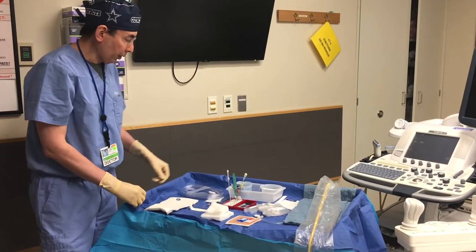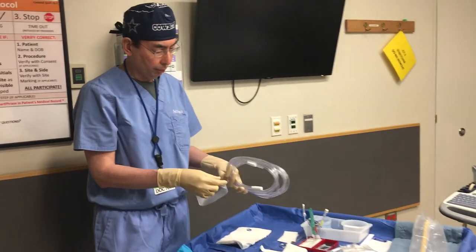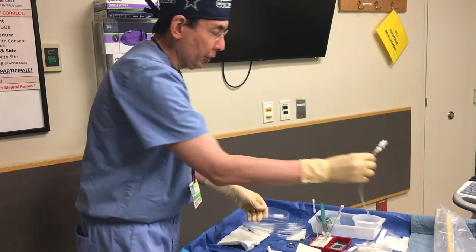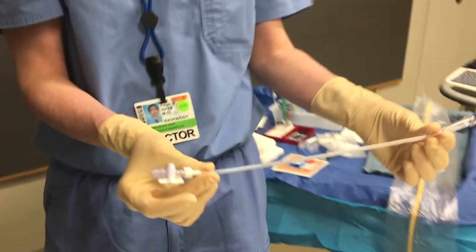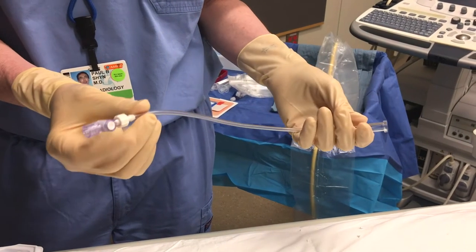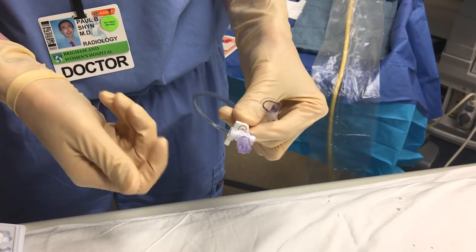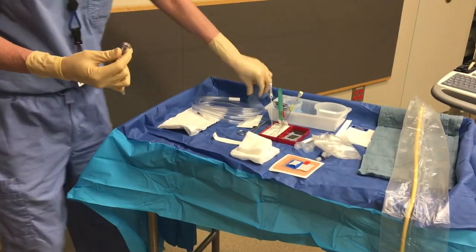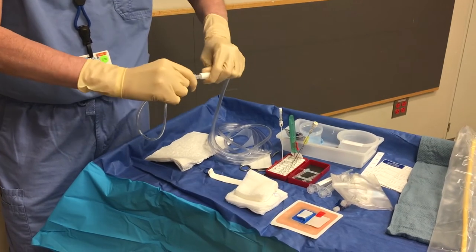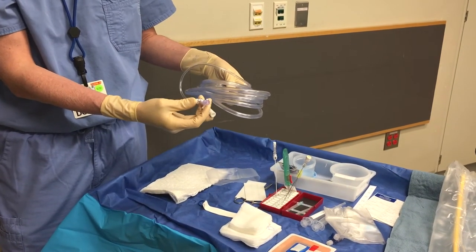For a paracentesis or thoracentesis, you'll use vinyl extension wall suction tubing — called a vinyl connecting tube. It has a female catheter connection end and a luer lock end with a two-way stopcock. Make sure the stopcock is snugly attached and closed. On the catheter end, fit in the extension tubing and press it in so it's ready to go. This tubing attaches to the centesis catheter, and the other end you hand off to the nurse who connects it to wall suction.